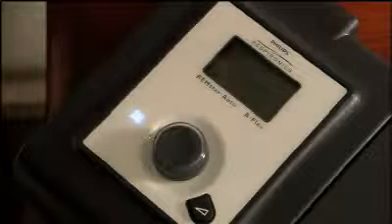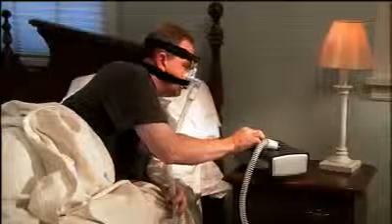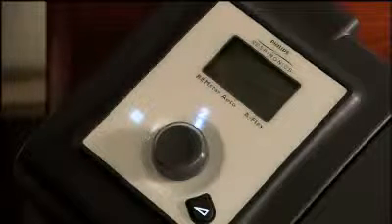If you have a humidifier, the humidifier icon and current humidity setting will light up on the device. You may choose to have the lighted number disappear 30 seconds after turning on the device. Turn the wheel to adjust the setting. A 2 is generally recommended, but the ideal setting will depend upon the temperature and humidity of the room.